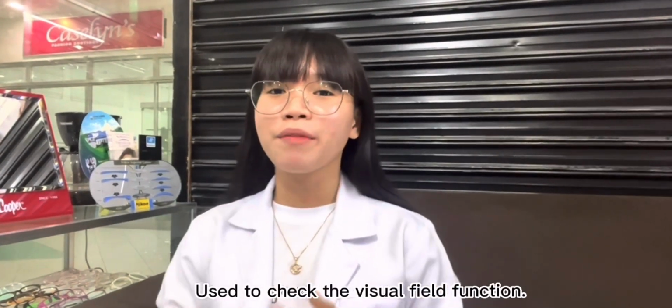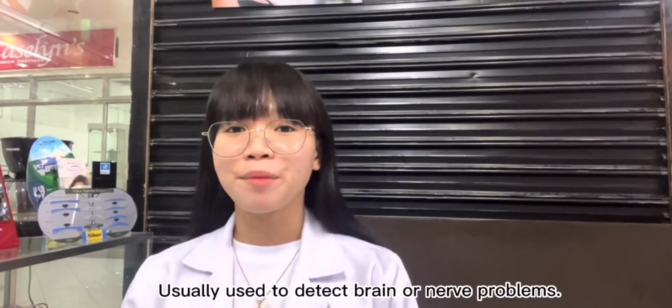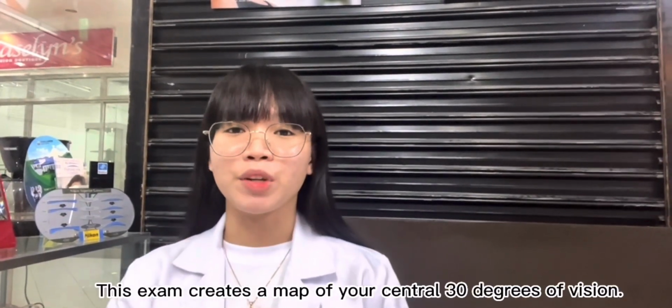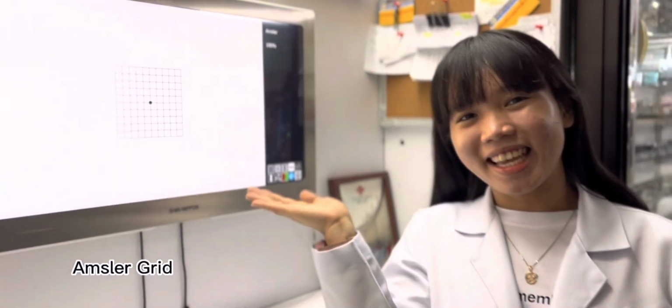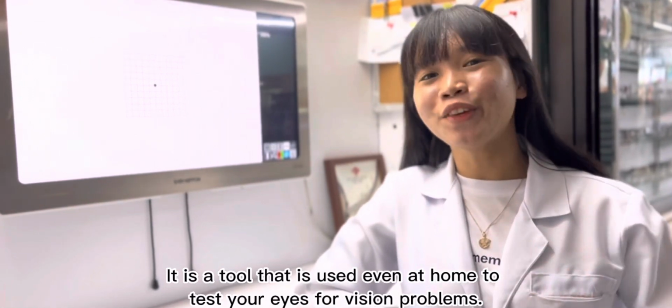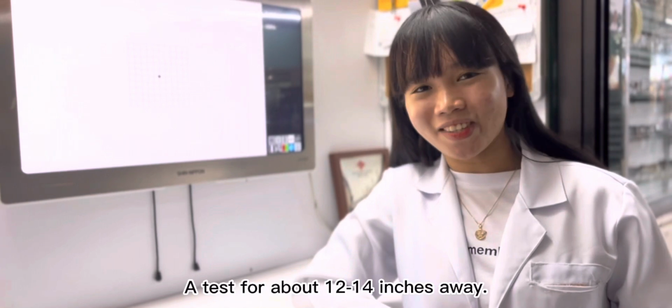Visual field tester includes perimeter, used to check the visual field function and for fast testing of the field of vision. Tangent screen, usually used to detect brain or nerve problems. This exam creates a map of your central 30 degrees of vision. Amsler grid. It is a tool that is used even at home to test your eyes for vision problems. A test for about 12 to 14 inches away.